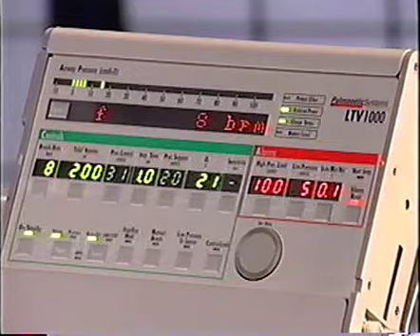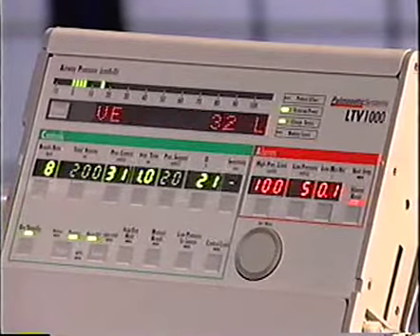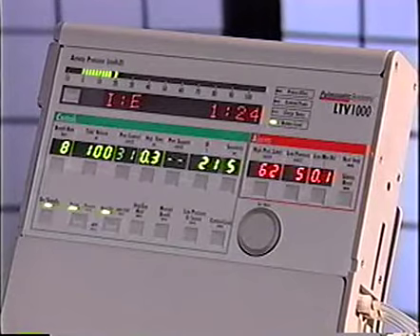The control displays on the LTV can be either bright or dim. The control display is bright when it is active or when selected for change. A control display is dim when another control is selected for changing and when it is not active in the current mode. For example, when pressure ventilation is selected, the volume control display is dim. The display can also be blank.